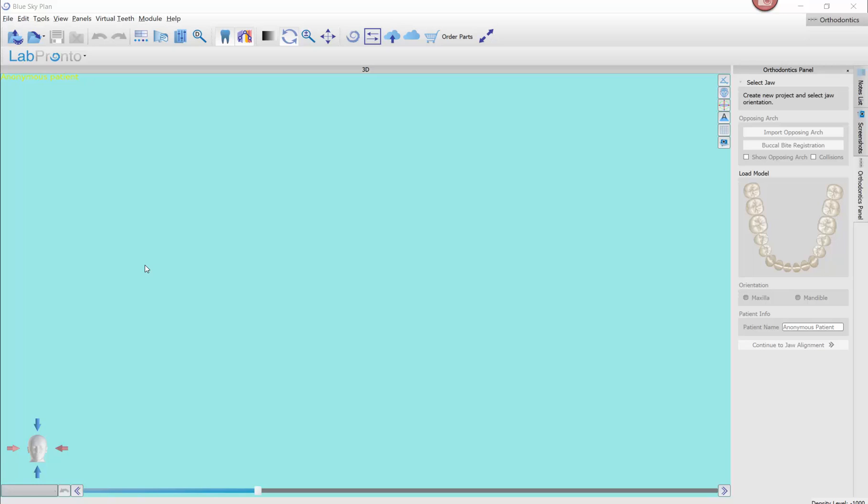Previously I've shown how to do that in the surgical guide software — you export them and bring them back into ortho. It works, but it is an extra step, and we want to cut down any extra work whenever possible. We couldn't figure out how he had done it because it wasn't repeatable for me, but the more we talked, we figured out the trick. It's now my go-to method. Before this, I was still cutting my models mostly in MeshMixer since I'm fairly adept at it. Now that this is possible right in the ortho module, I honestly don't even bother with MeshMixer — I simply take my scans straight into ortho and work from there.